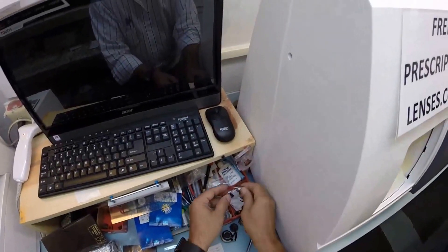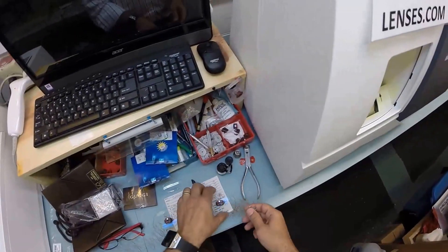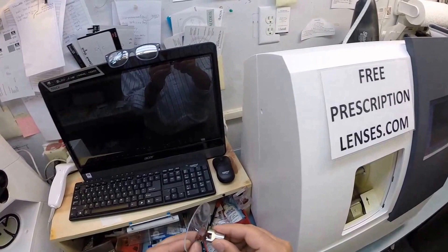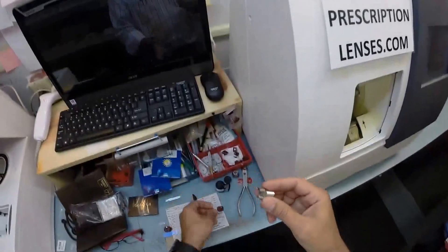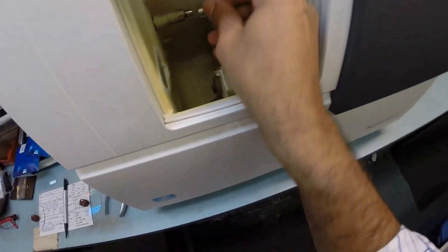Because I'm using the smaller blocks tonight, I need to change these out. Put the smaller ones in there. This is what's going to hold it in place while it is cutting. So I need to put these into the edger.